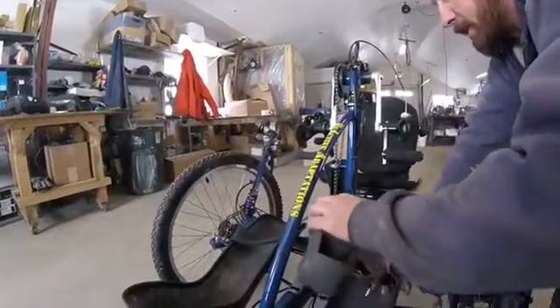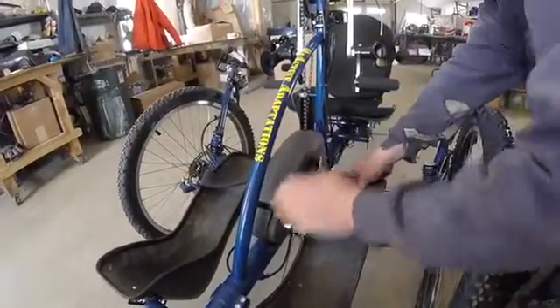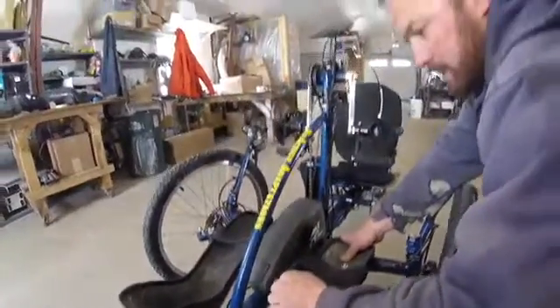It's a tight squeeze in here. Then you push this forward, take the keys out, and put them in a backpack or something like that. Piece of cake.